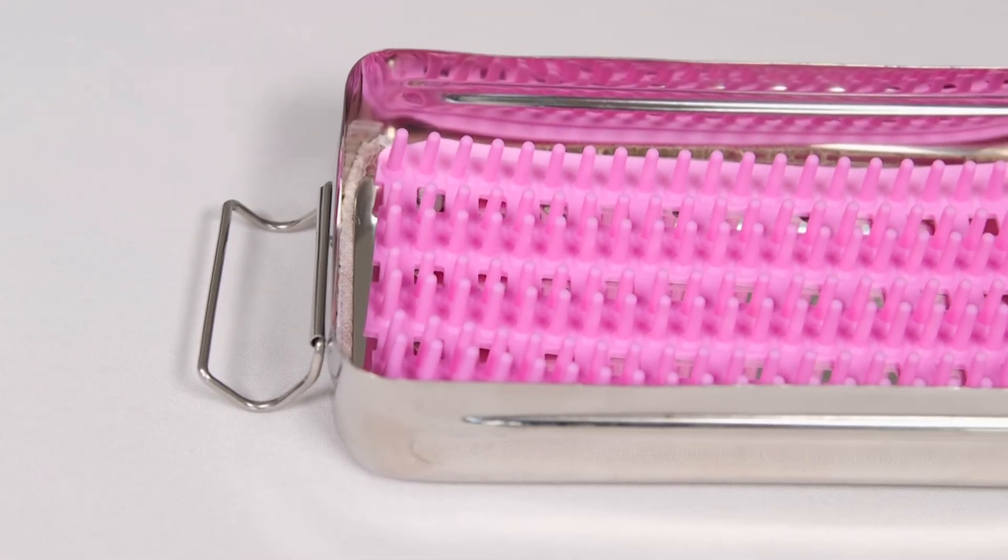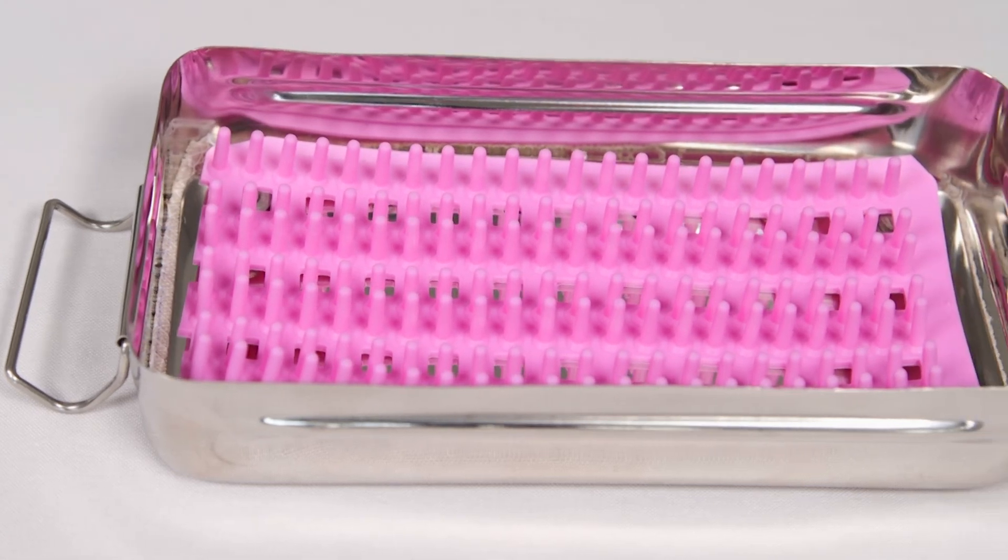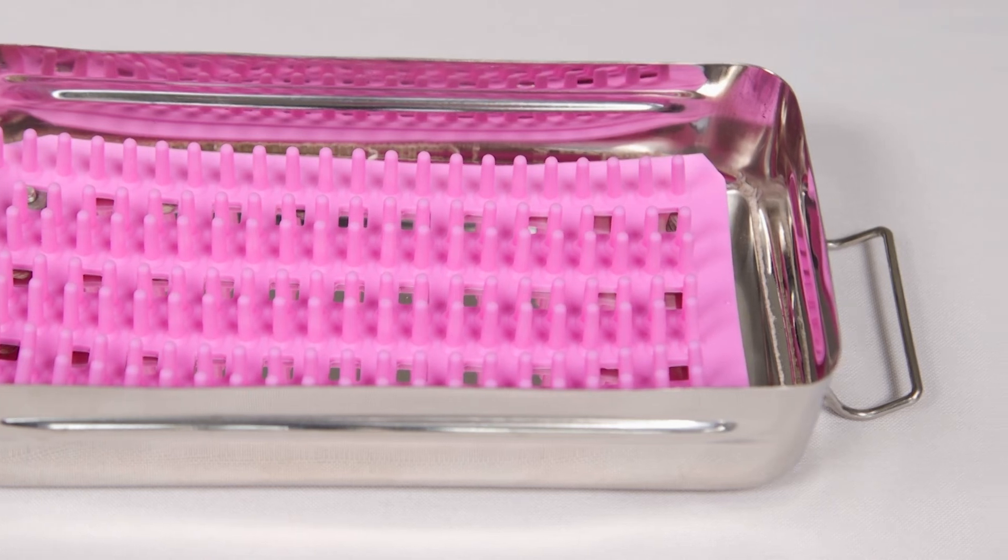In the base of the fully autoclavable stainless steel instrument box you will find a silicon insert designed to protect these delicate instruments during autoclaving and storage.